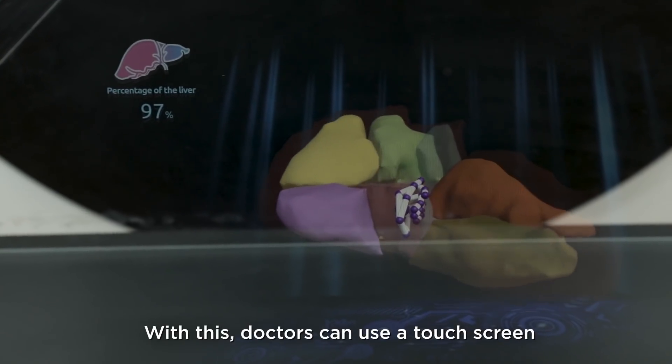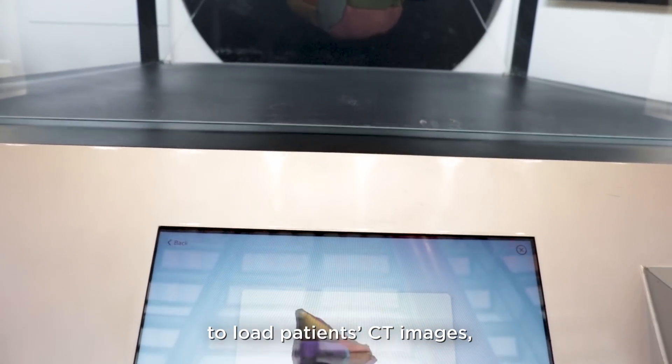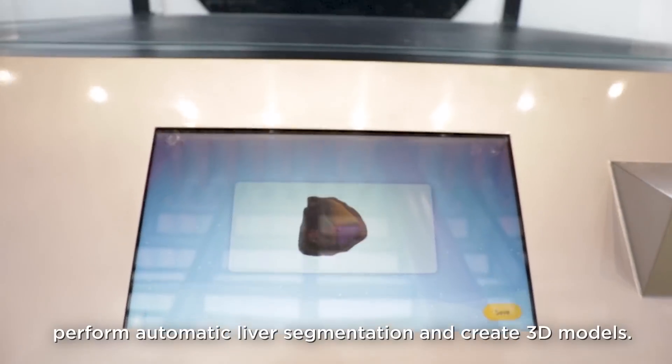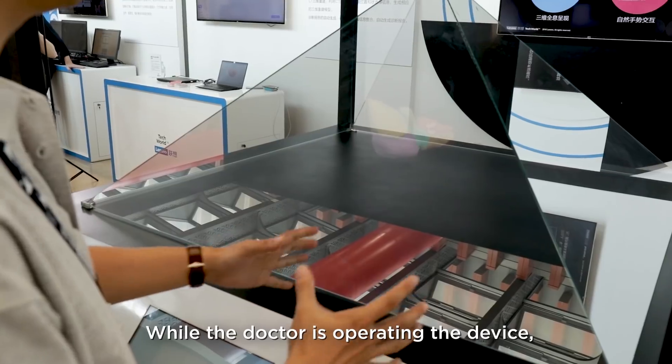With this, doctors can use a touch screen to load patients' CT images, perform automatic liver segmentation, and create 3D models.